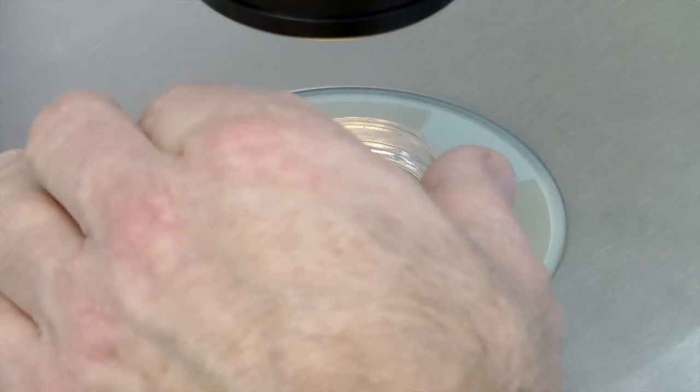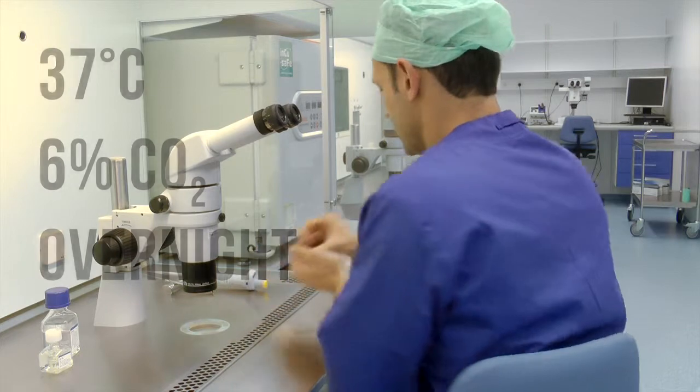Equilibrate this dish at 37 degrees Celsius and 6% CO2 overnight.